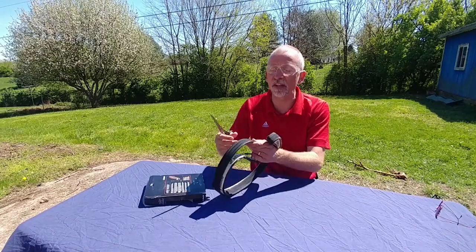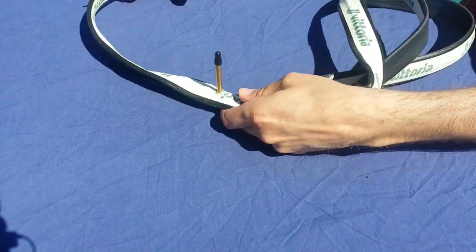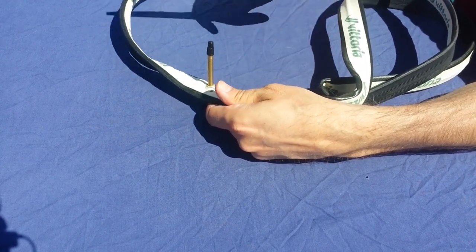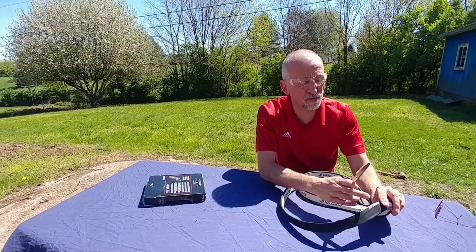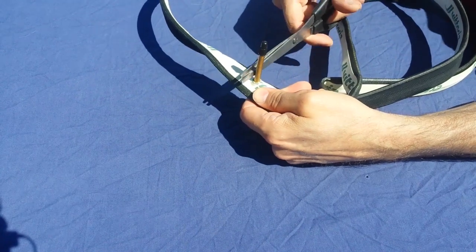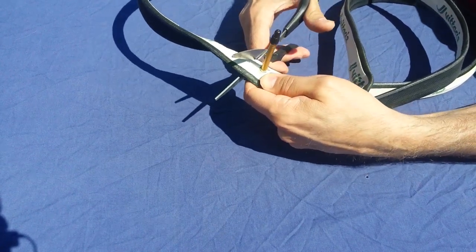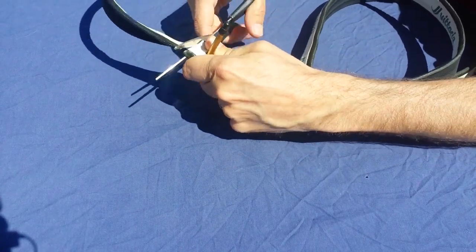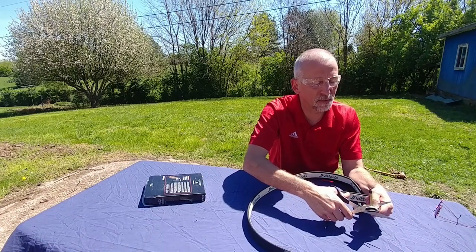We particularly like using tires because they come with tread so you get a little extra grip. This is just the brand we have because it has a good tread on it. Before you do the work of gluing it on, you need to prepare the tire. There's a valve stem just like any other tubular tire. At the valve stem, you're going to cut away the tire on each side of the valve stem. I'm going to cut a perfectly good tire so that you have perfectly good rubber on the push rim of your chair. Working on each side of the valve stem and giving yourself a little bit of a gap, you just take the scissors and work your way right through. You need a good set of scissors for this because it is not easy to cut. Then I cut the other side of the valve stem to cut the valve stem out of the tire.